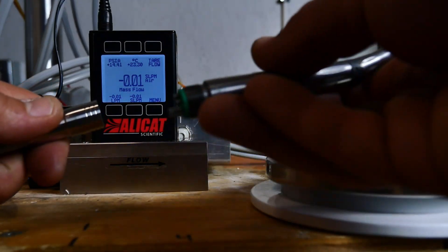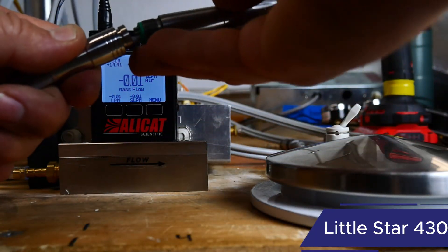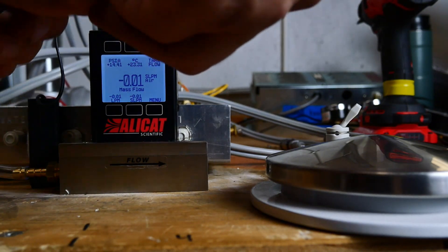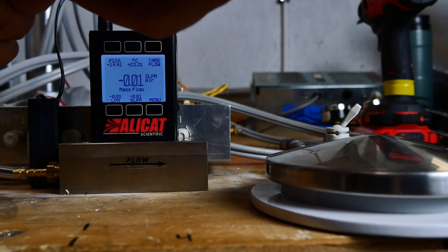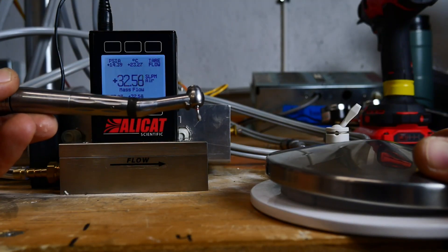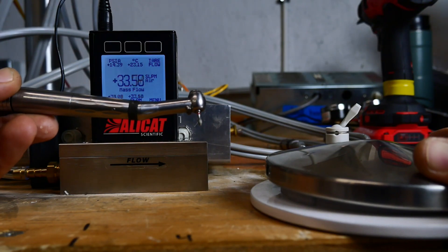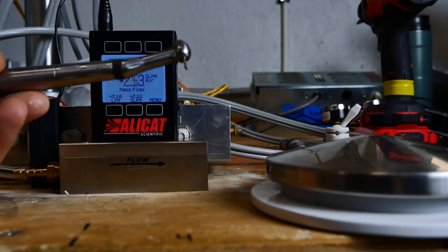Next is a Star 430 — this one's not a swivel, it's an old timer. That climbs to 34 standard liters per minute.